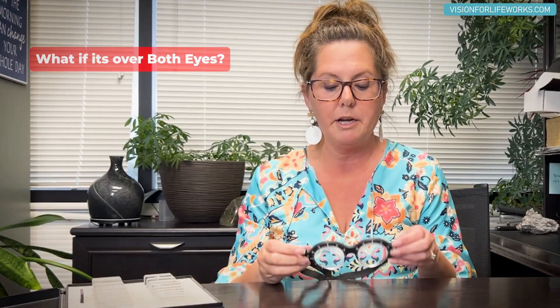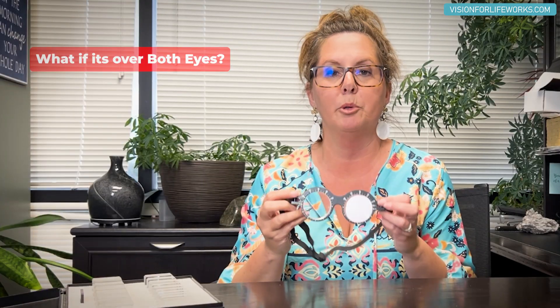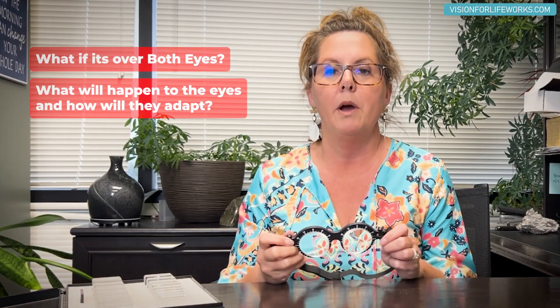So that's what happens when you put a prism in front of the eye based on orientation. Again, the base is the flat part and the apex is the point. Now let's look at what happens when a prism is placed over both eyes and why I'm somewhat opposed to wearing prisms that are the same for both eyes, like base out/base out or base in/base in.